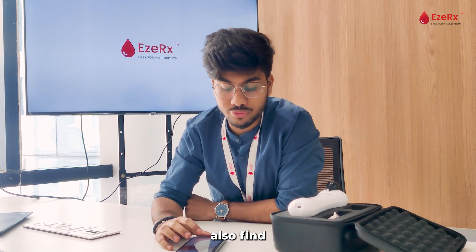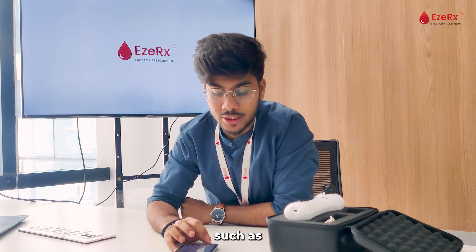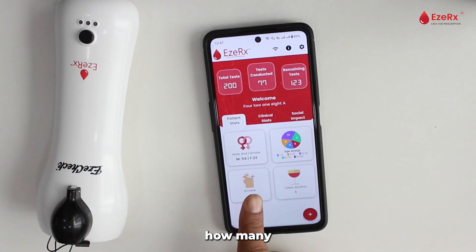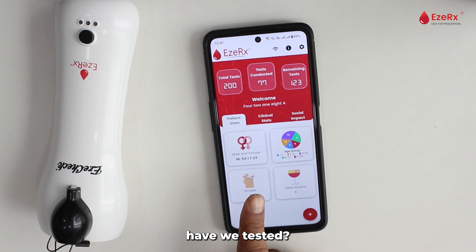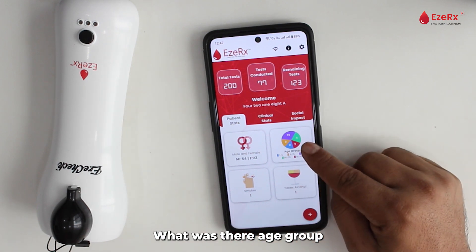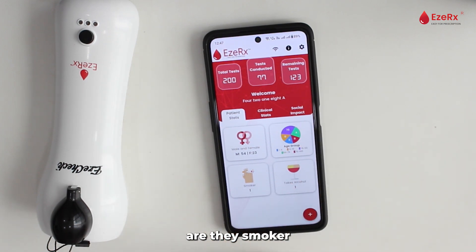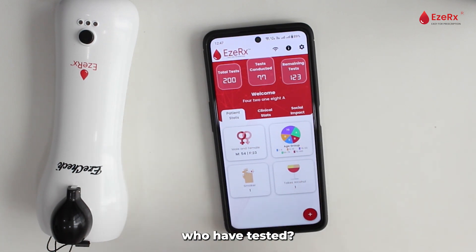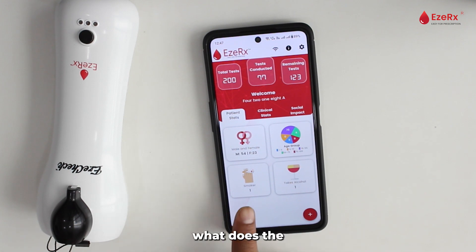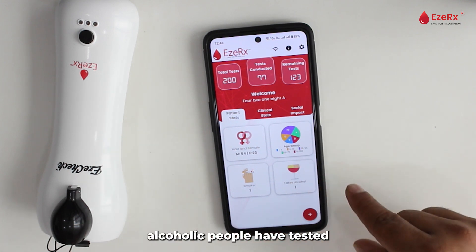We will also find statistics for the patient, such as how many males and females you have tested, what was their age group, how many smokers you have tested, and how many alcoholic people you have tested.